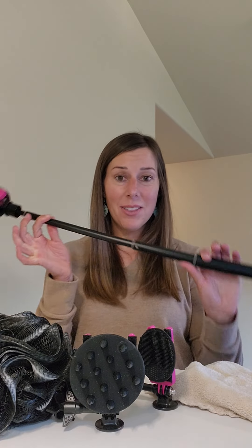Hi everybody! I'm excited to show you the bathing attachments for the Soach Stick. I have a scrubber attachment on my long Soach Stick. The reason you're going to want to use the long is so that you can scrub your back, you can reach all the way down to your toes. This will telescope to a length that is so long that I cannot even fit it into my camera screen.